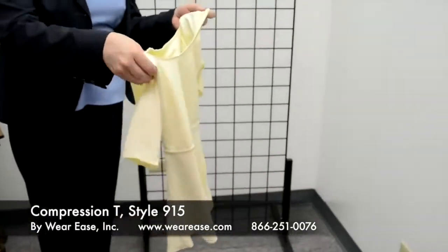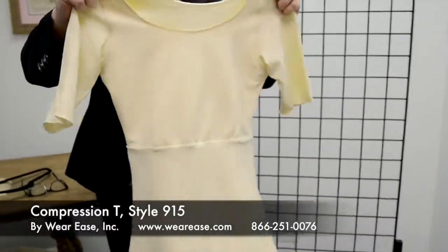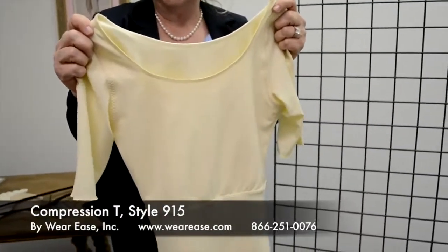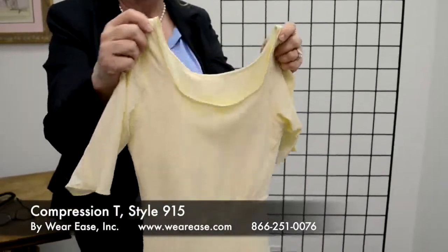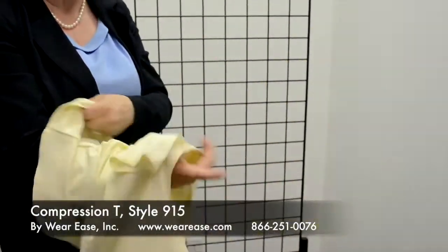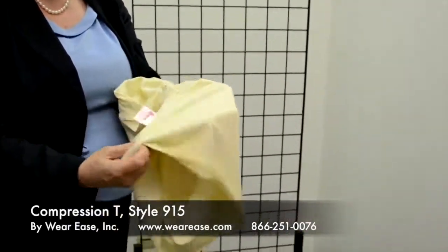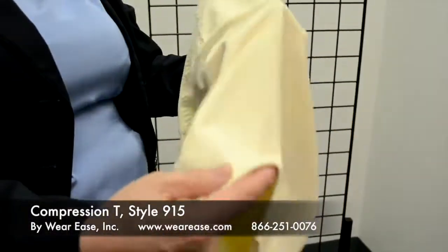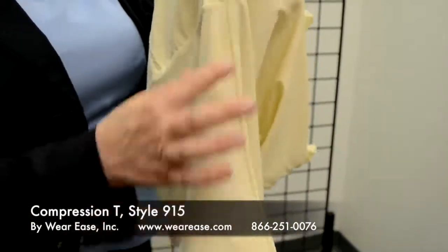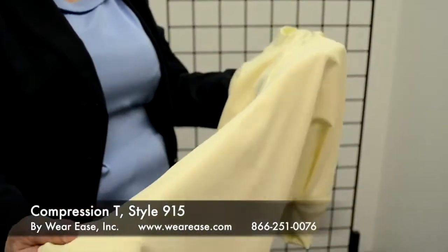is we've created a garment with a sleeve. The idea is to provide more coverage between the woman's compression sleeve and compression top. This garment is constructed very similarly to the other garments in that there is no seam touching the body. All of the seams in the body of the garment are between the layers of fabric, so there's no seam here to irritate the woman's body.